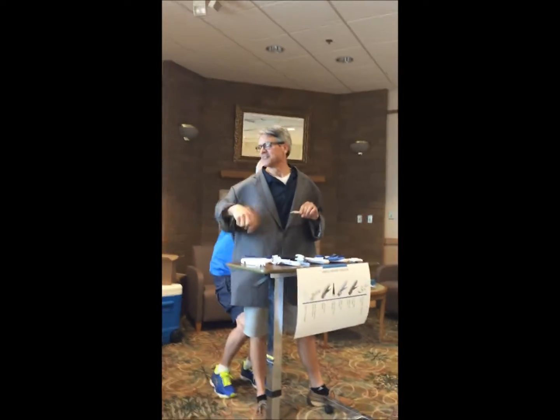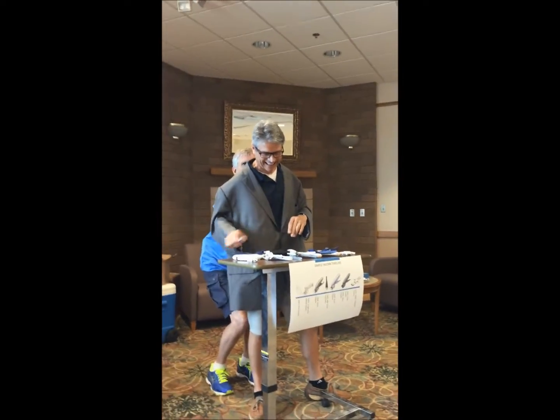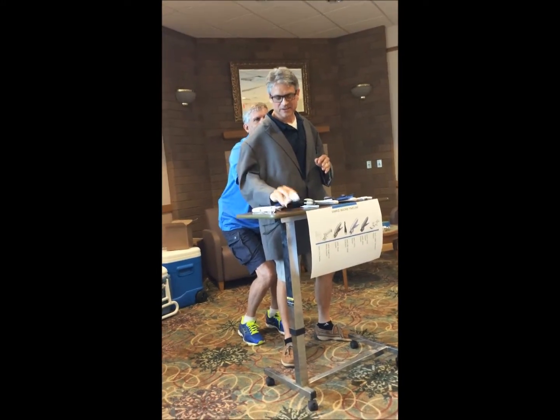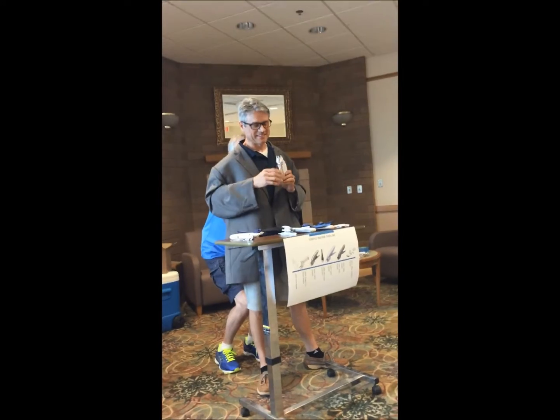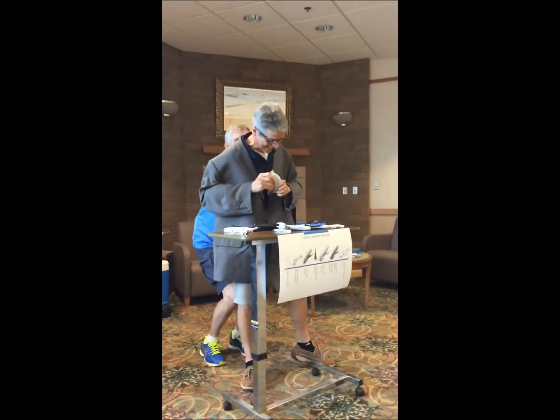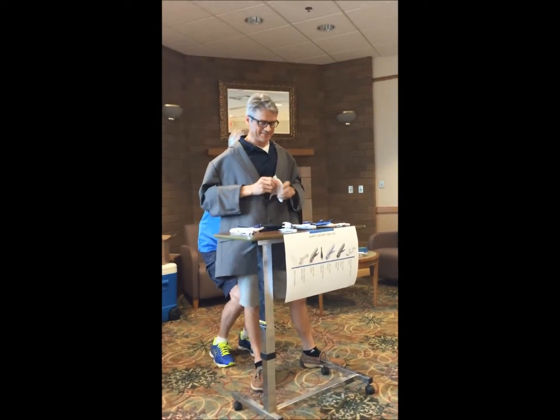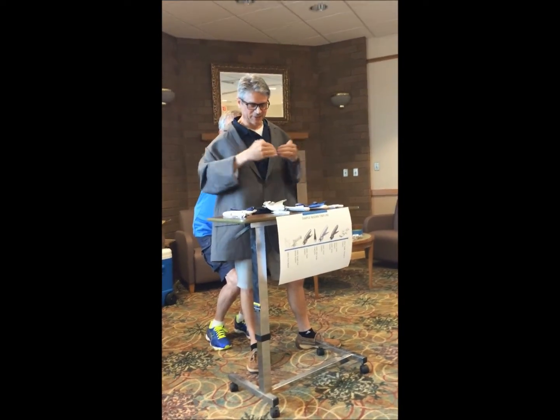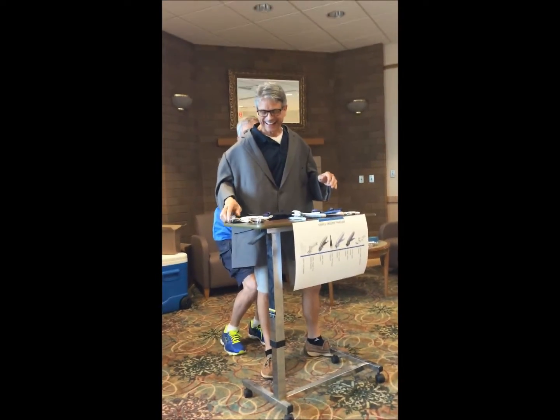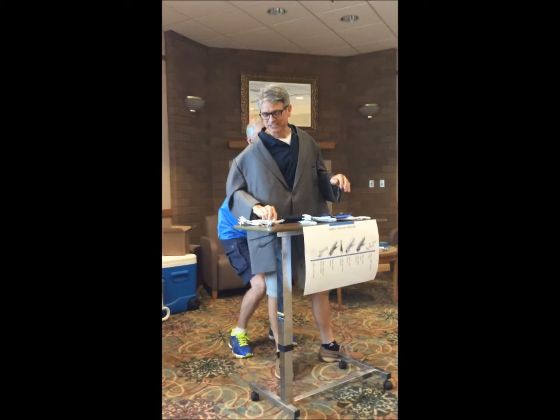I think Dave, you designed that one. Alright, now grab the next plastic one, Dave. Hold that up — that's a 10-20. Now show them the arms, Dave. Anyways, that was a 20-shot stapler.